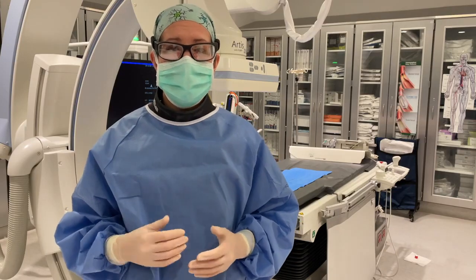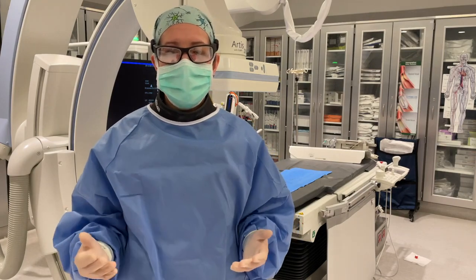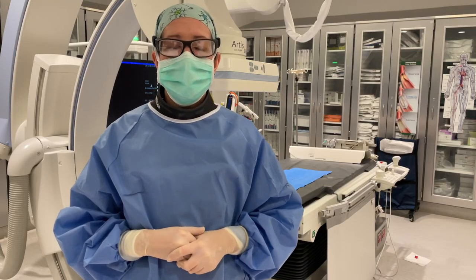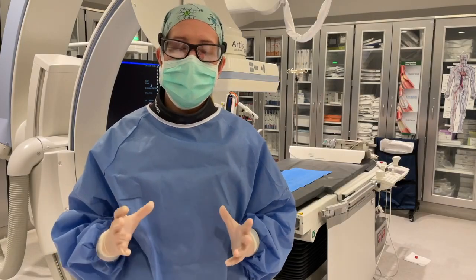I use RADPAD radiation protection shields nearly every day in my fluoroscopy suite because radiation protection is of the utmost importance to me. In a series of short videos, we'll show you the optimal placement for different kinds of cases using different models of the RADPAD.